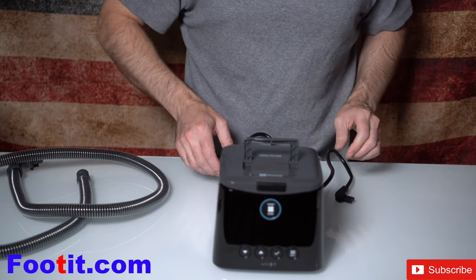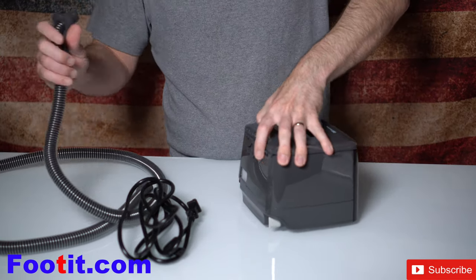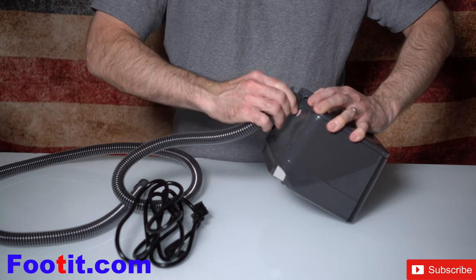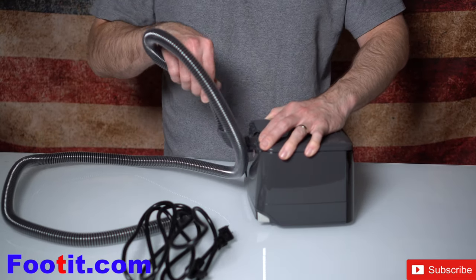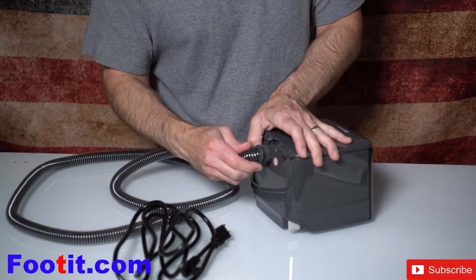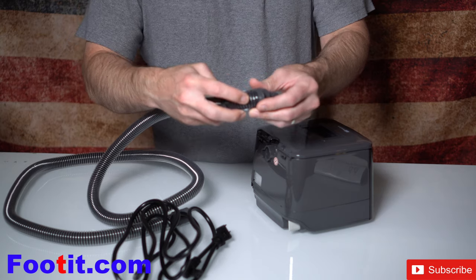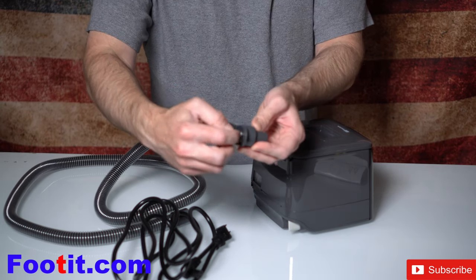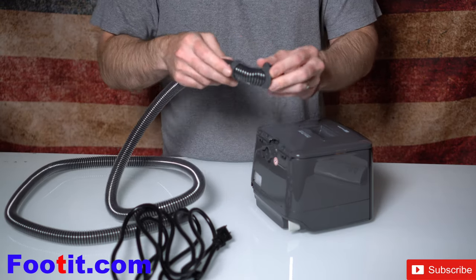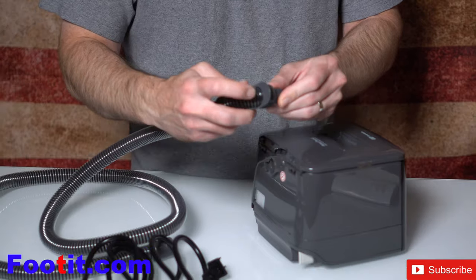That's one of the biggest arguments people make with off-brand CPAP machines. Just like the other big names in the industry, you do have heated tubing, which is great for the humidifier. It goes in the back and you can turn it 360 degrees, which is great so no matter what side of the bed you're sleeping on. I also like this plastic feature — often I see with other brands that this hose breaks apart at the end after a little bit of time. This plastic keeps it intact and puts less pressure off the end.